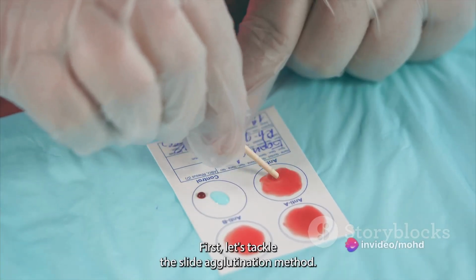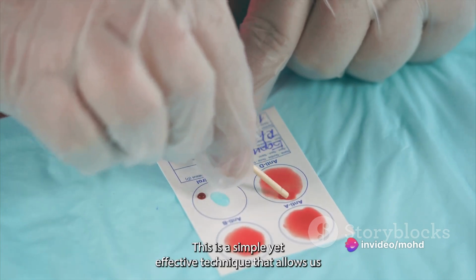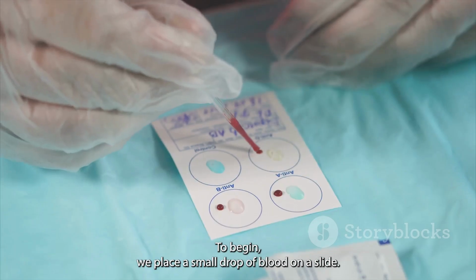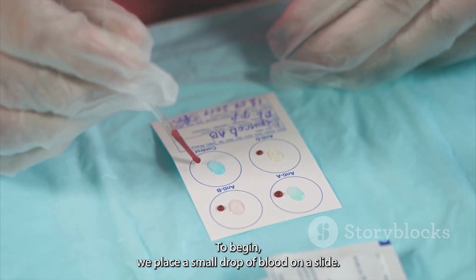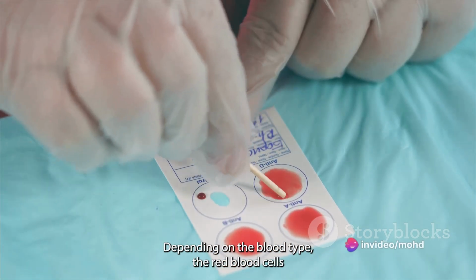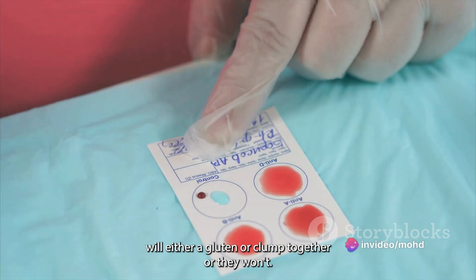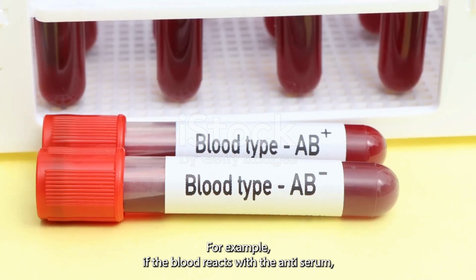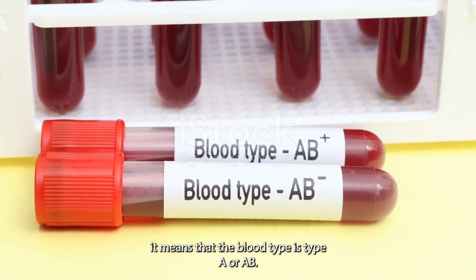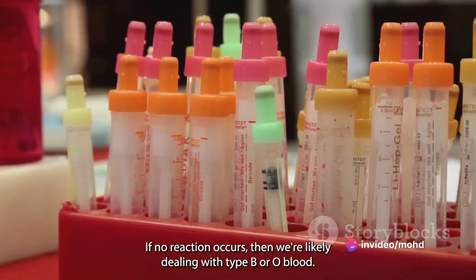First, let's tackle the slide agglutination method. This is a simple yet effective technique that allows us to identify the ABO and Rh blood groups. To begin, we place a small drop of blood on a slide. Then we add an anti-A or anti-B serum to the blood. Depending on the blood type, the red blood cells will either agglutinate, or clump together, or they won't. For example, if the blood reacts with the anti-A serum, it means that the blood type is type A or AB. If no reaction occurs, then we're likely dealing with type B or O blood.